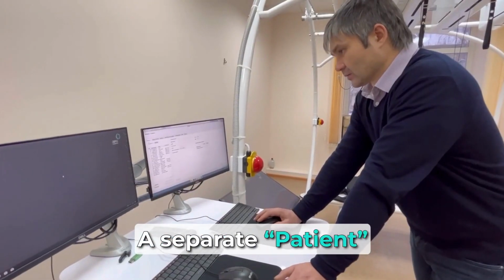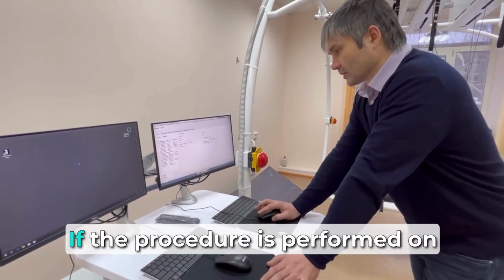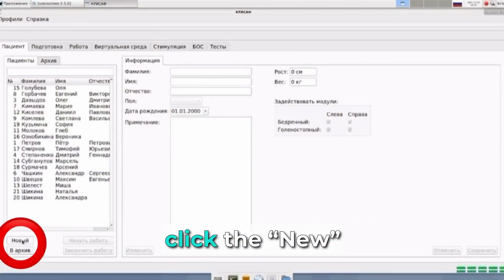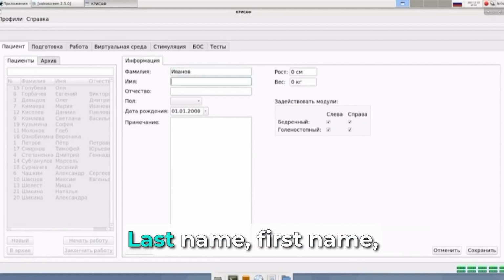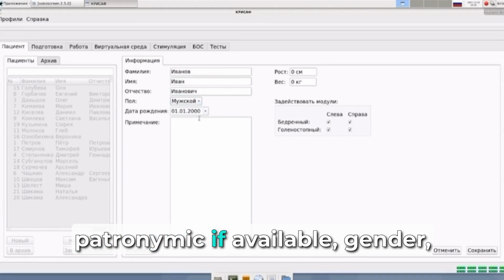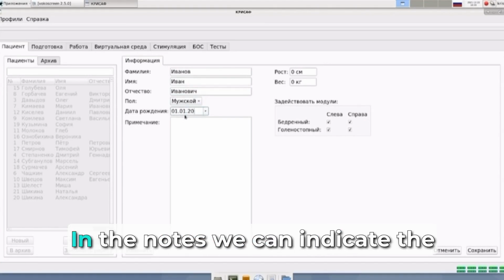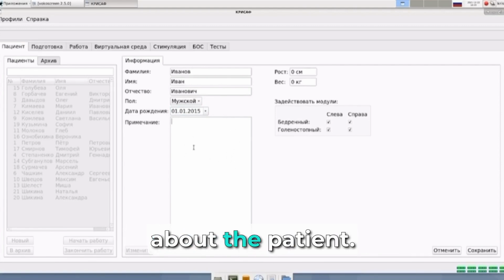A separate patient tab is provided for entering the database. If the procedure is performed on a patient for the first time, click the New button and fill in the following information about the patient: last name, first name, patronymic if available, gender, date of birth. In the notes we can indicate the patient's diagnosis or other necessary information about the patient.